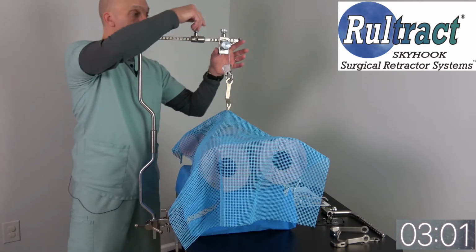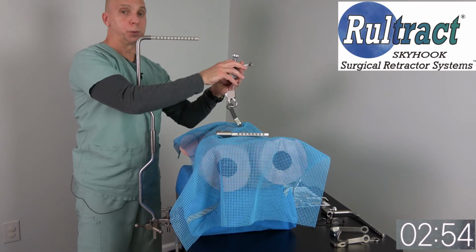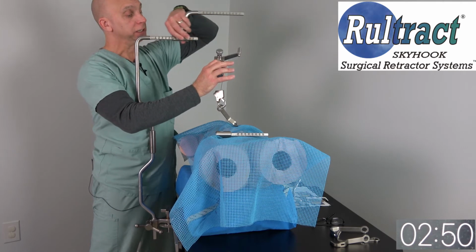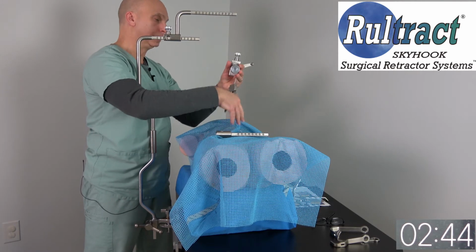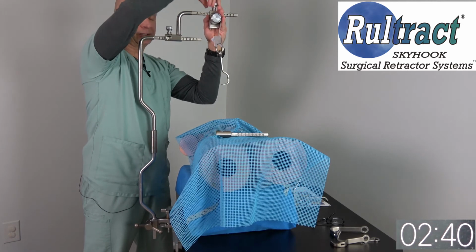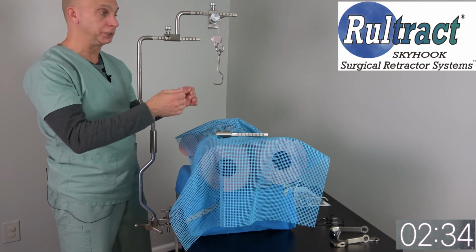So what we recommend for the larger patient is a riser extender bar. You're still going to be able to extend out over the center of the table for the midline incision. However, you gain about 4 inches of height. And this is also going to be beneficial for IMA on obese patients because, again, you're gaining additional height over the chest.